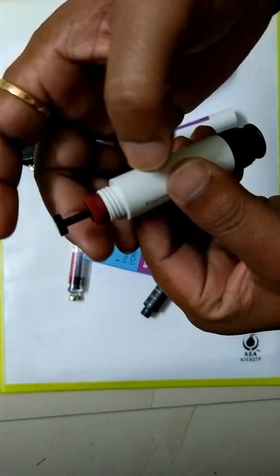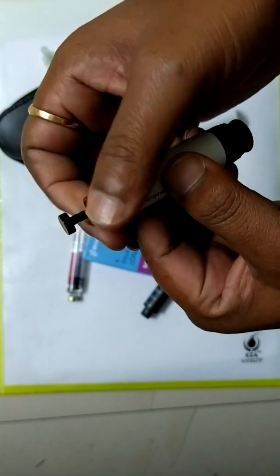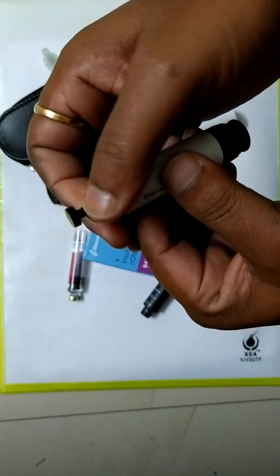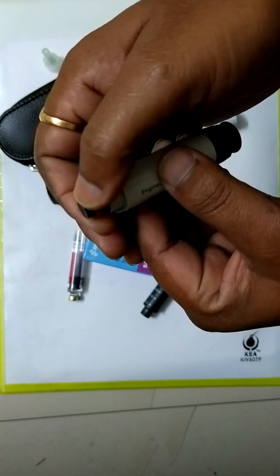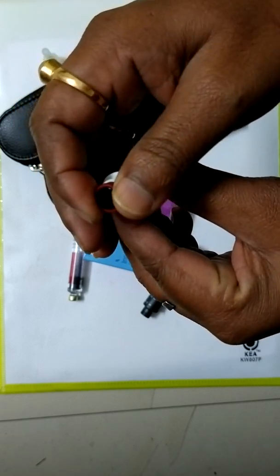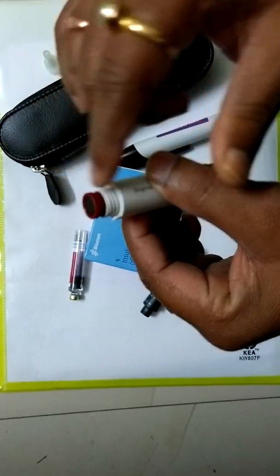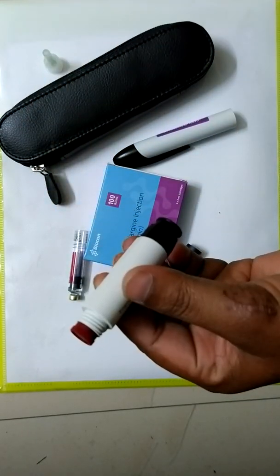Never push the head. It will damage your insulin pen. The plunger head is at the base.